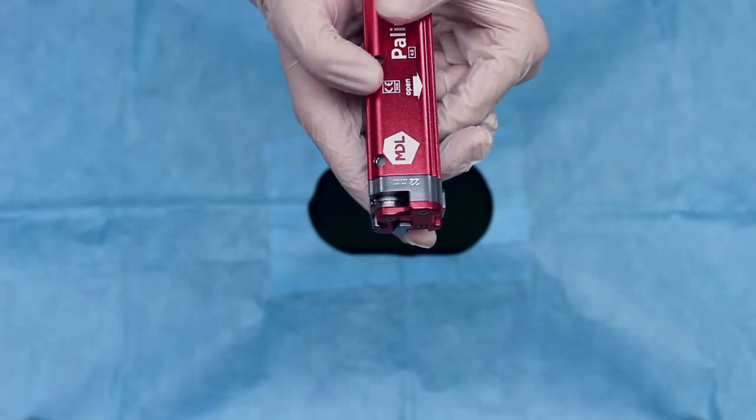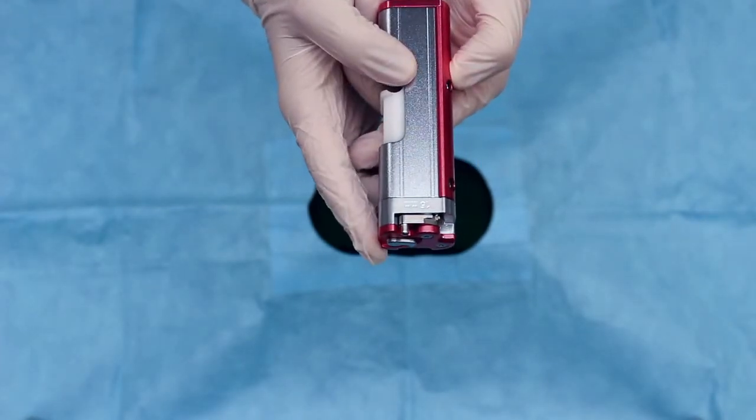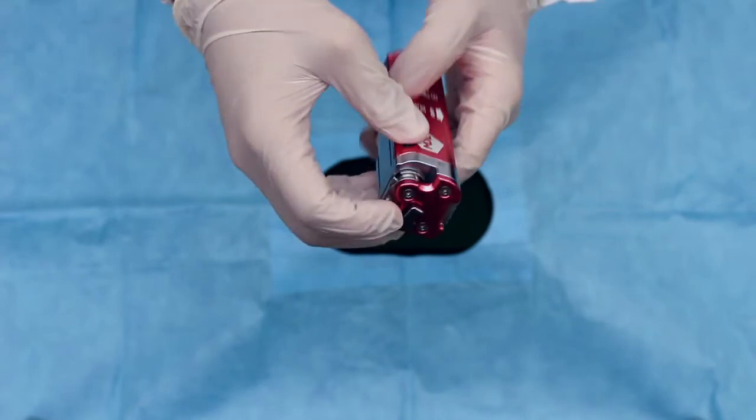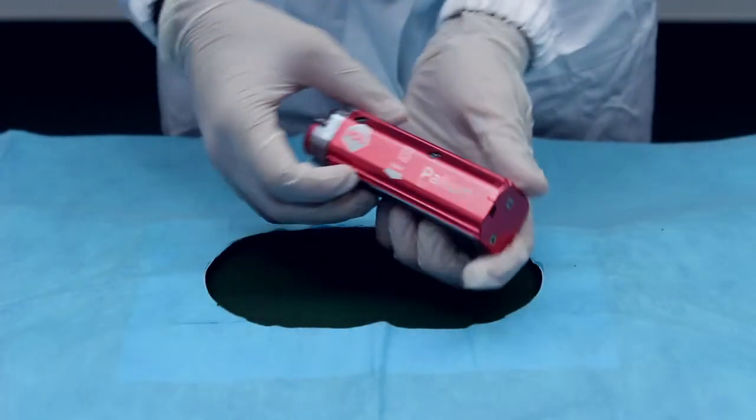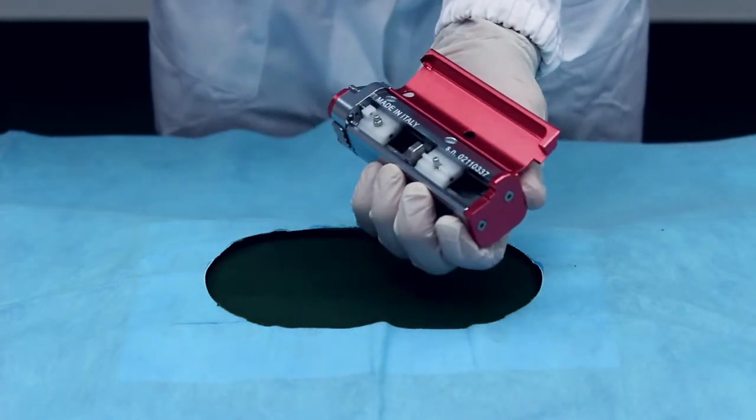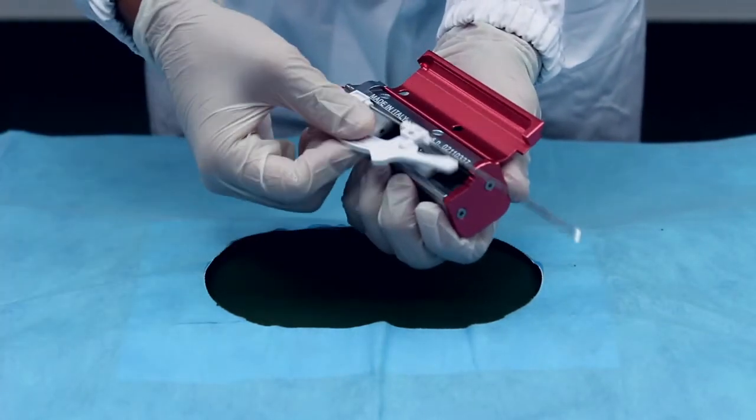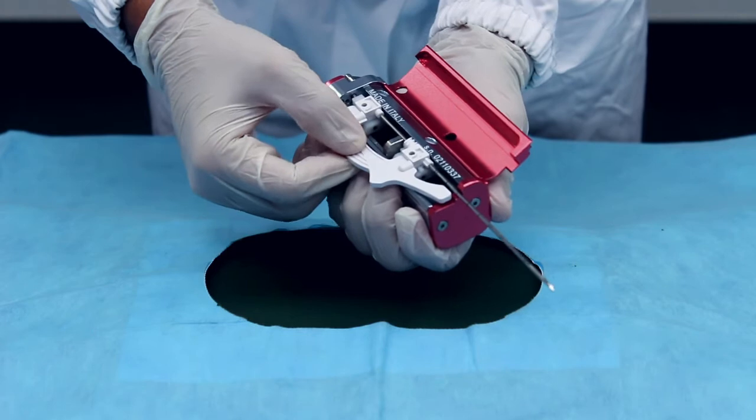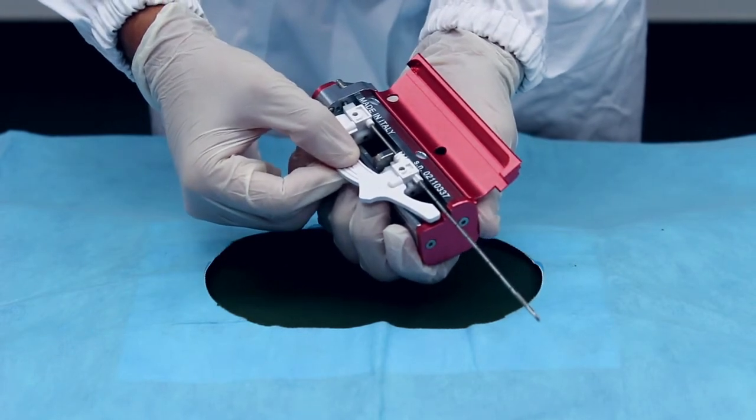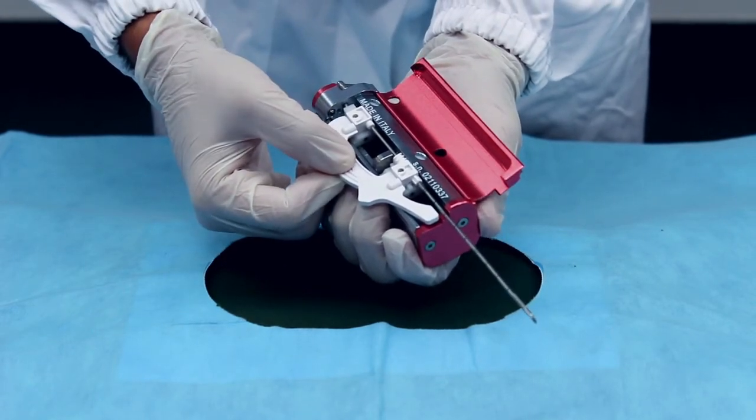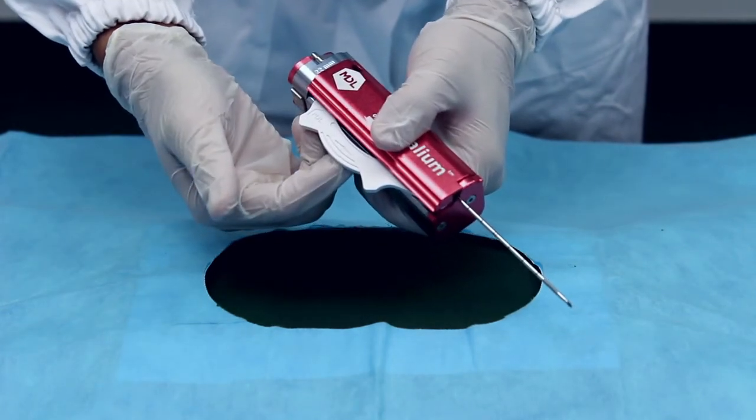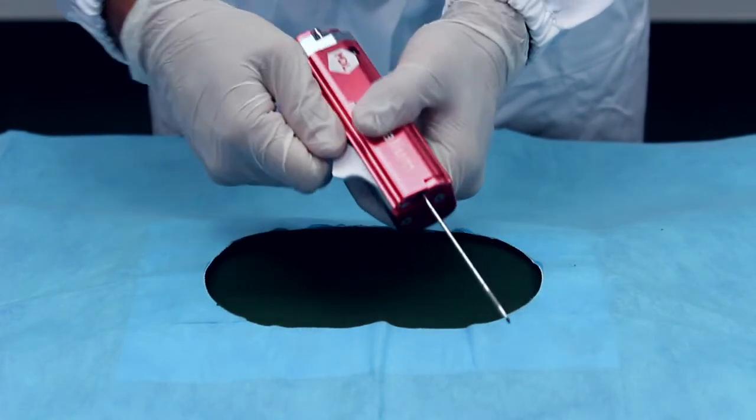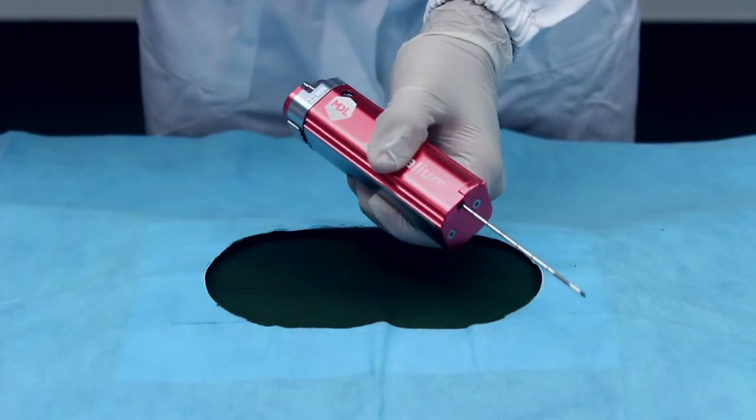Position the length selector to the desired sample length of either 15 or 22 millimeters. Open the lid and insert the Palium needle by matching the holes on the Palium needles with the two pins inside of the Palium gun. Close the lid on top of the Palium needle with the spacer still inserted, pulling the spacer out and pushing the lid down at the same time.